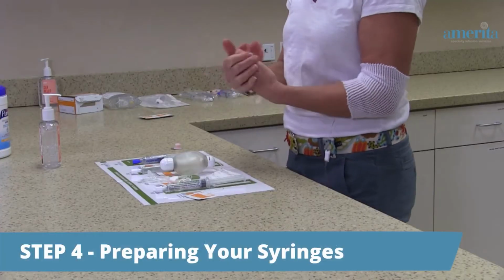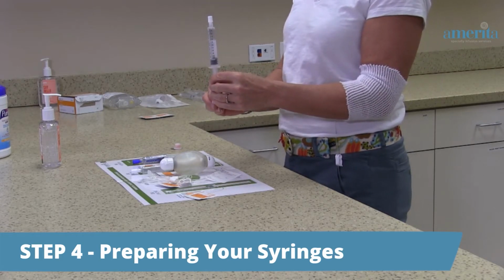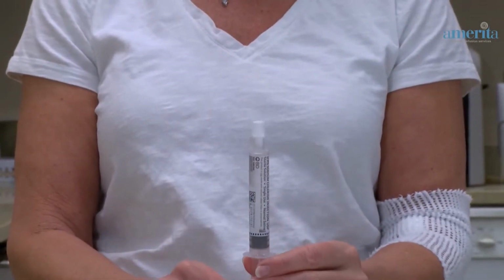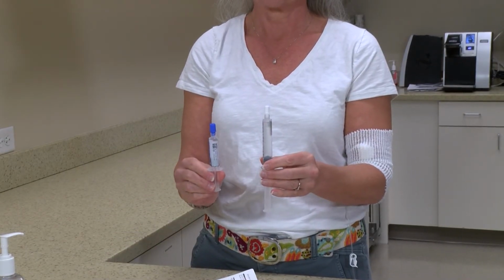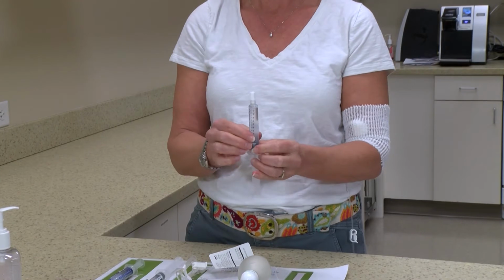Step 4, preparing your syringes. Now you will prepare the syringes. Each pre-filled saline and heparin, if used, syringe has a cap on the end. To make it easier for you, the saline syringes have a white cap, and the heparin syringes have either a blue or a yellow cap. They are also clearly labeled on the side of the syringe.